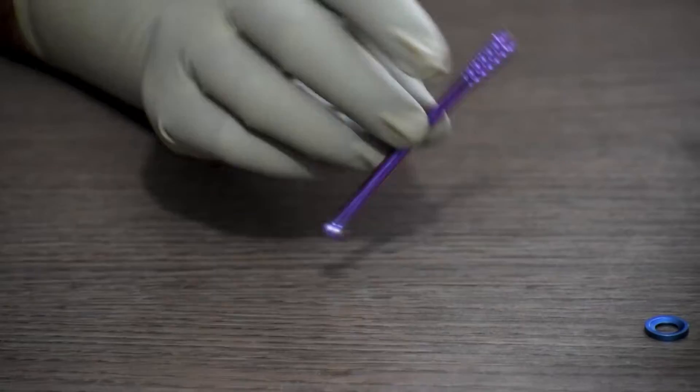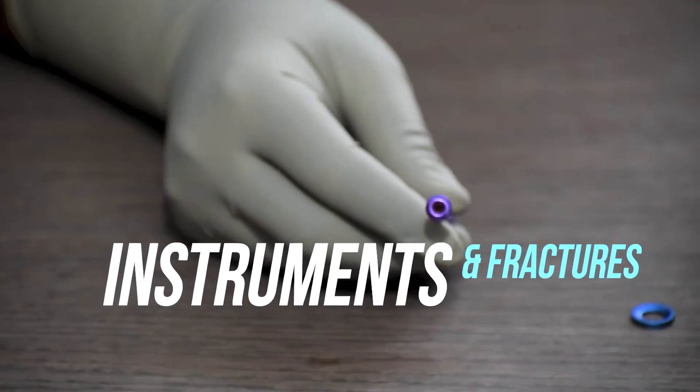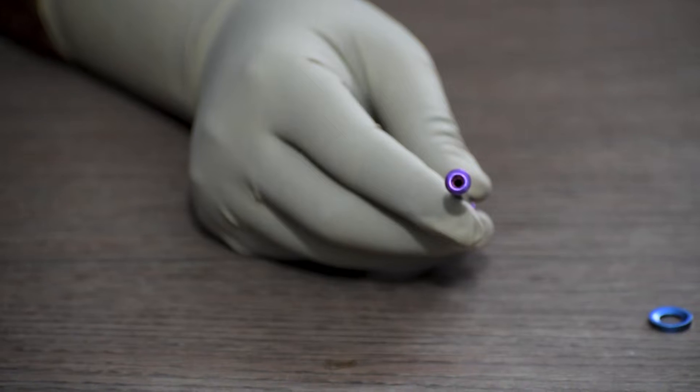Today we will discuss the 6.5mm cannulated cancellous screw, instruments, and fractures it can help fix.